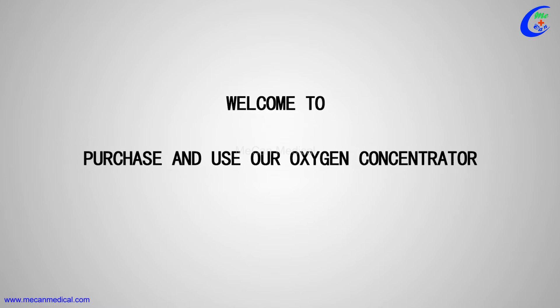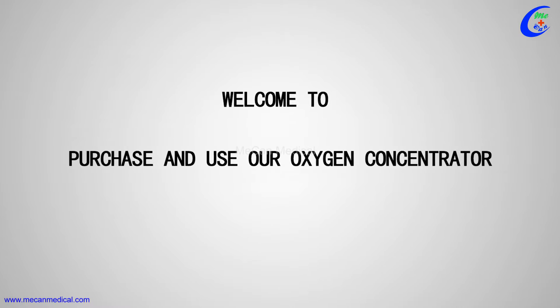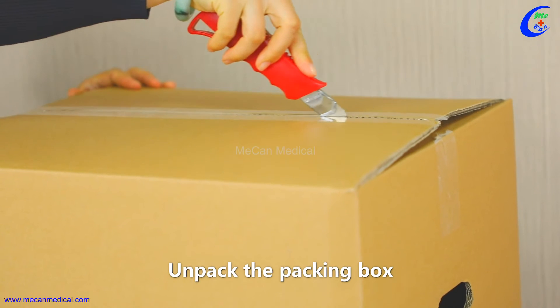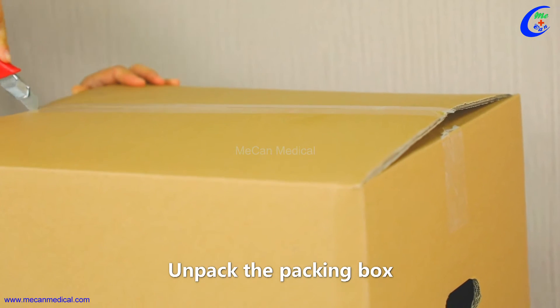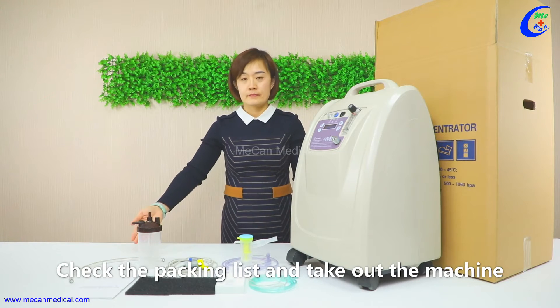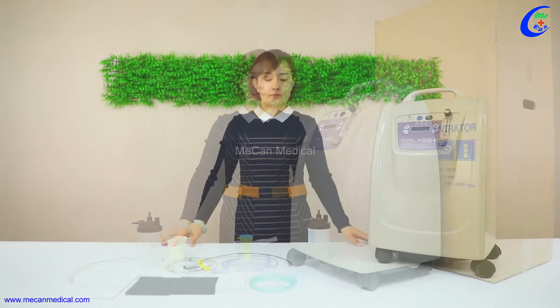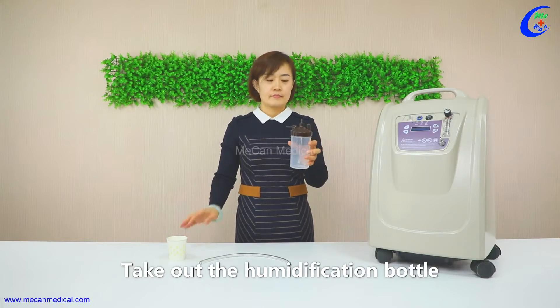Welcome to purchase and use our oxygen concentrator. Unpack the packing box, check the packing list, and take out the machine. Then take out the humidification bottle.